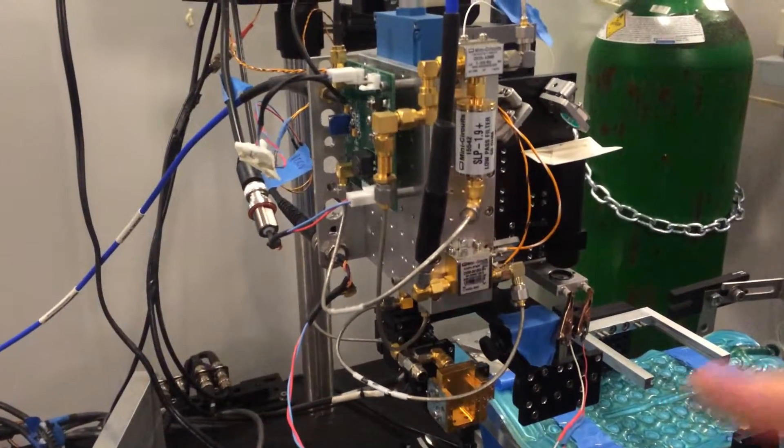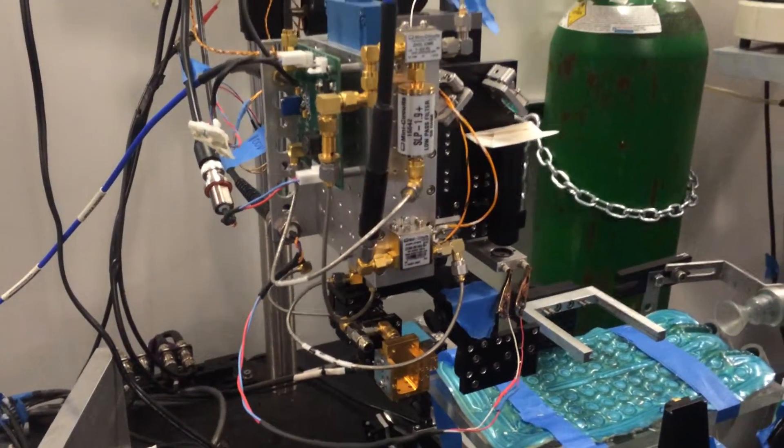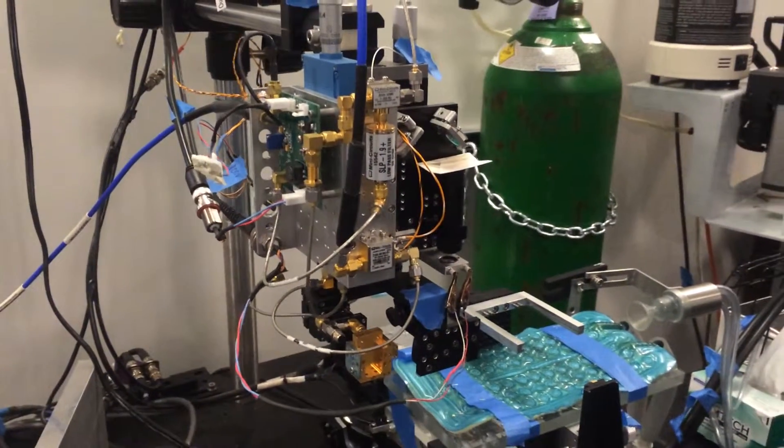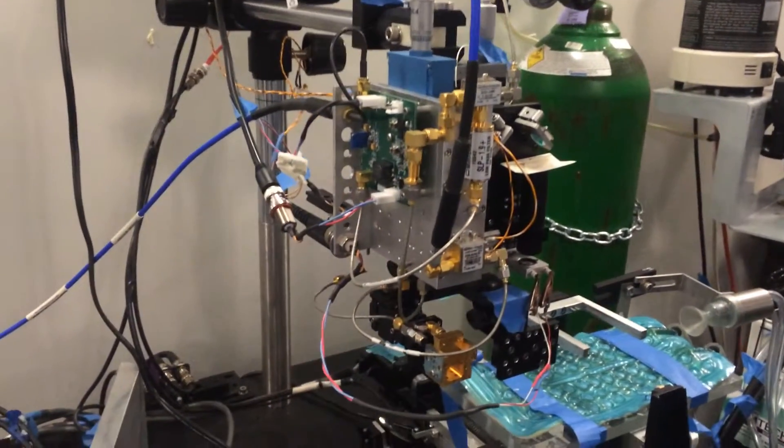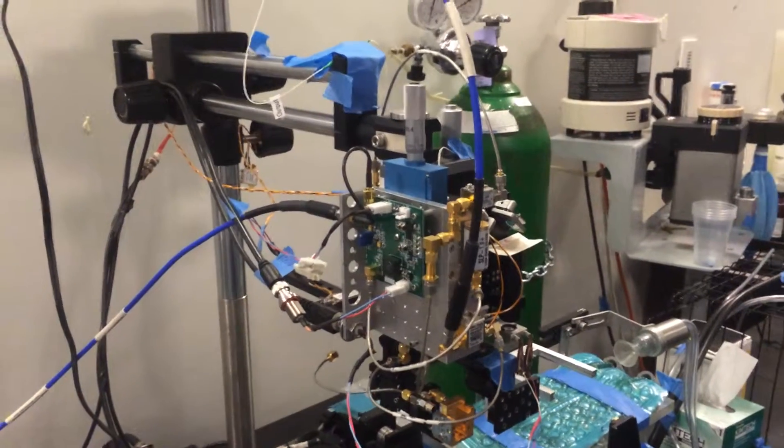But eventually we'd like to get it down to sub-minute. And the signal-to-noise, if you look at the signal-to-noise considerations of the system, I don't see why less than a minute is not feasible. It's just kind of a practical optimal translation problem.